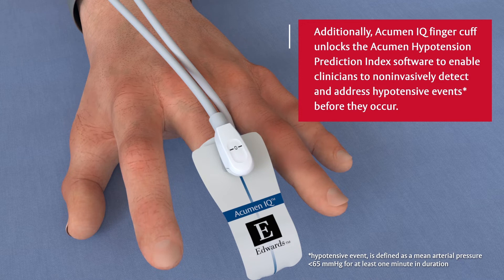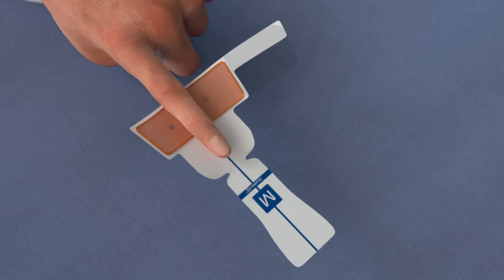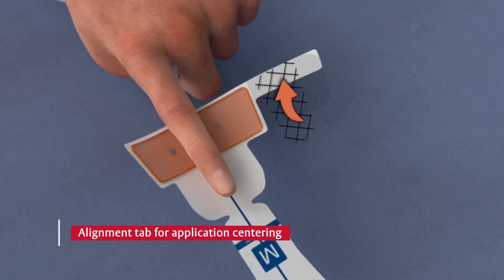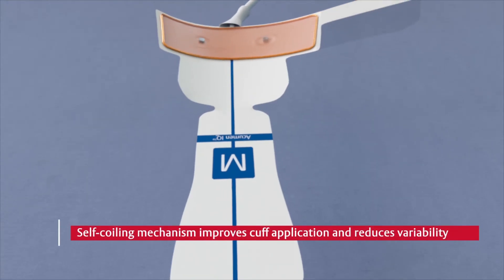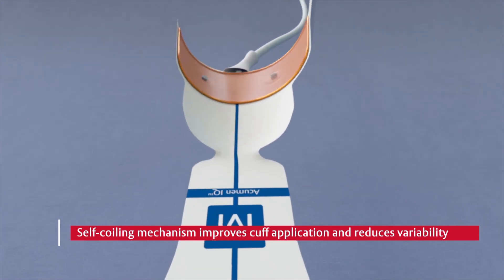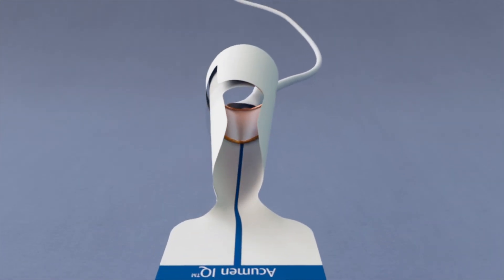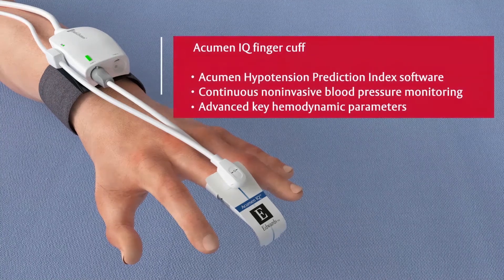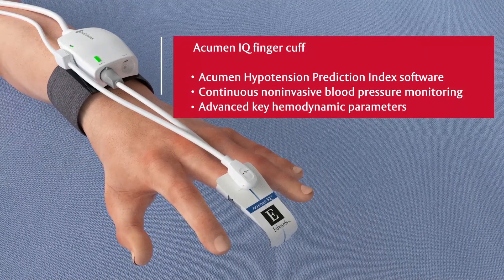Features include alignment tab for application centering, easy to use self-coiling mechanism to provide consistent snugness, and access to non-invasive hypotension prediction index software.